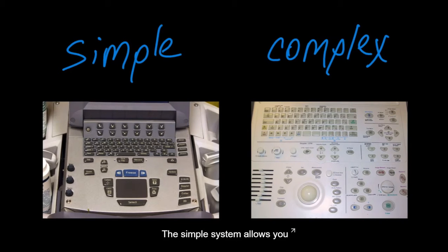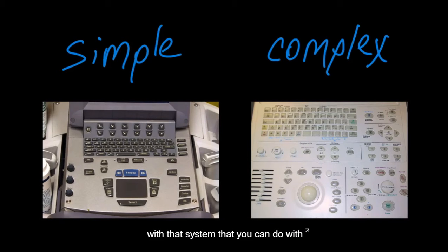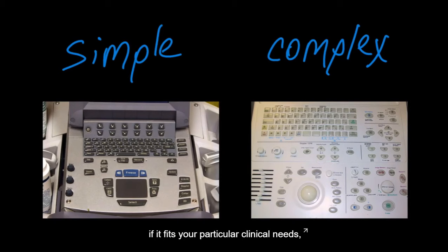The simple system allows you to more rapidly use ultrasound clinically, but there are limitations to the simple system. There are some things you will not be able to do with that system that you can do with the more complex system. So you have to find what ultrasound system fits your particular needs. Many times I'm asked, well, which system is the best? Well, the system is the best if it fits your particular clinical needs and you feel comfortable using it. So let's dive right in.